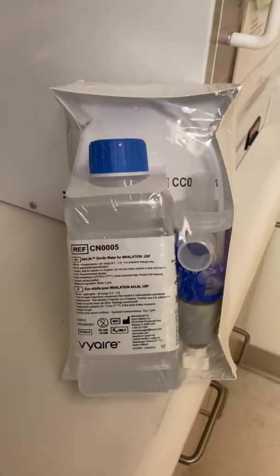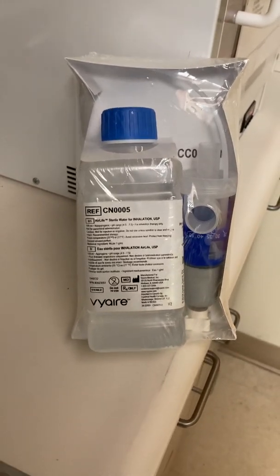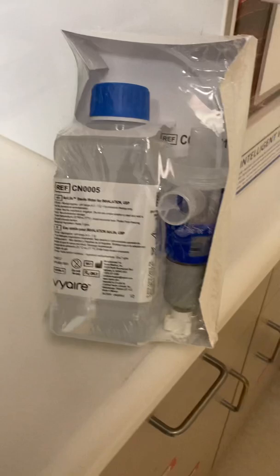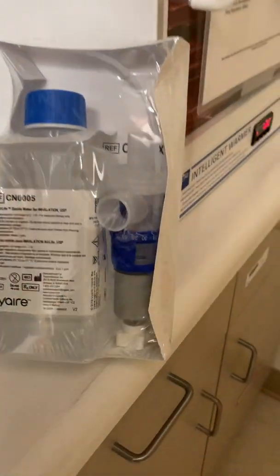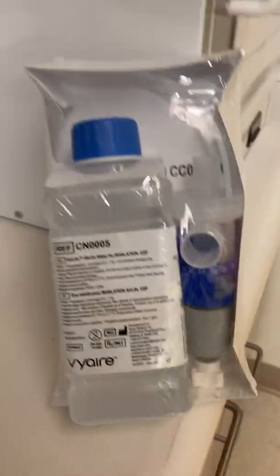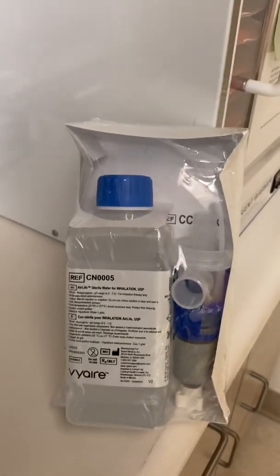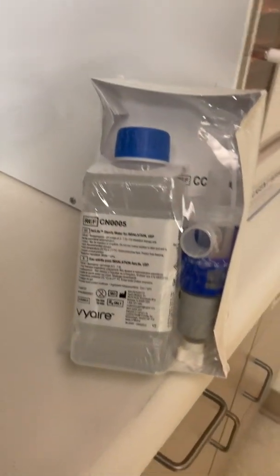When we have the tracheostomy tube in place, it bypasses the nares, which is the humidification system. So we have to provide humidification for them, as well as oxygenation. We'll connect this to some corrugated tubing, a drainage bag, and a tracheostomy collar.